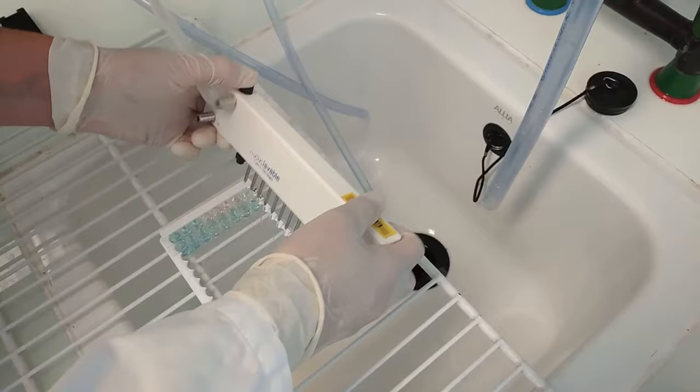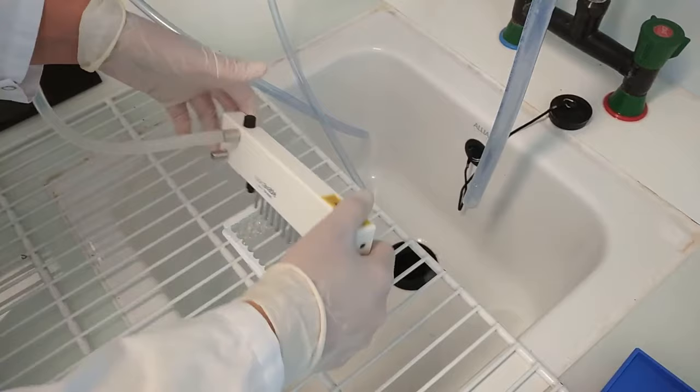Between washes, avoid drying of the wells and ensure that the wells are completely empty. In order to improve this step, it is also possible to leave the wash solution in the wells for 30 seconds to 1 minute.